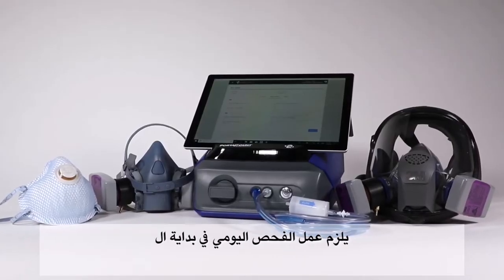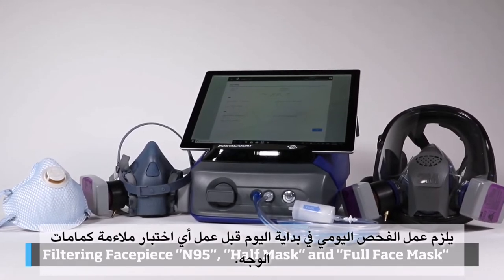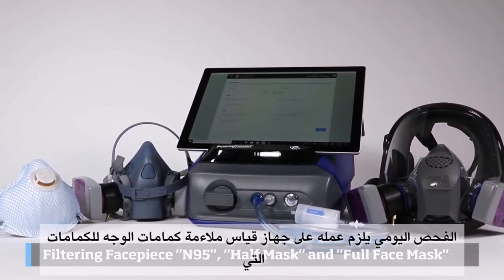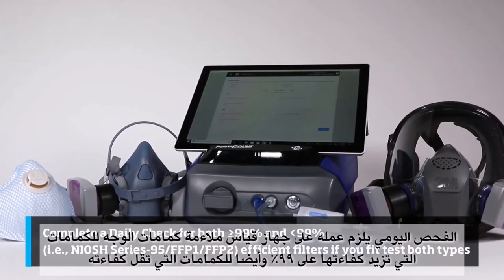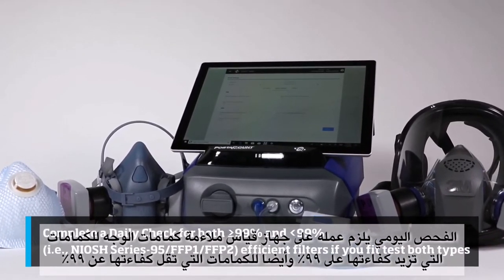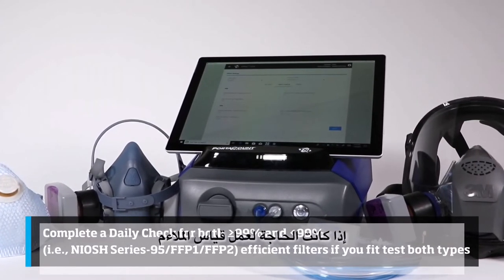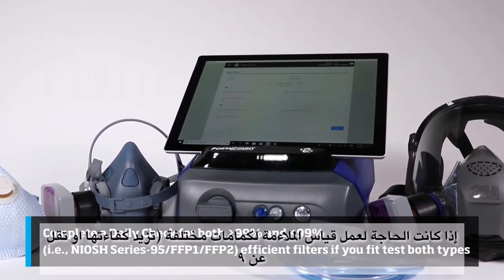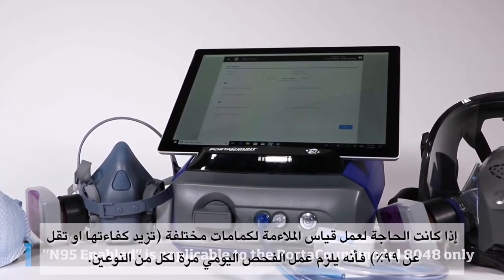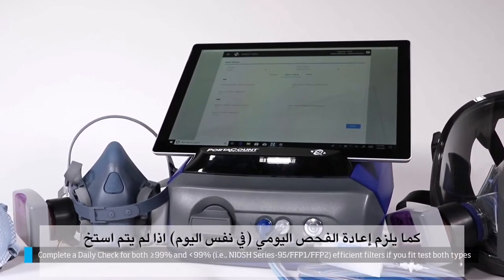A daily check should be performed at the start of the day before any fit testing is done. A daily check should be done for respirators with greater than 99% filter efficiency and for respirators with less than 99% filter efficiency. If both types of respirators are to be fit tested, then two daily checks should be conducted.